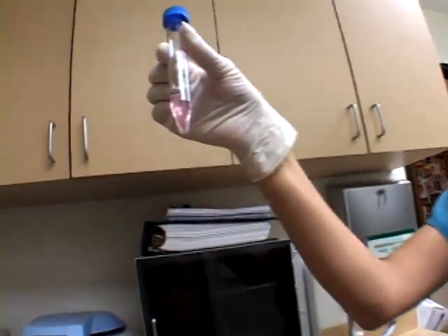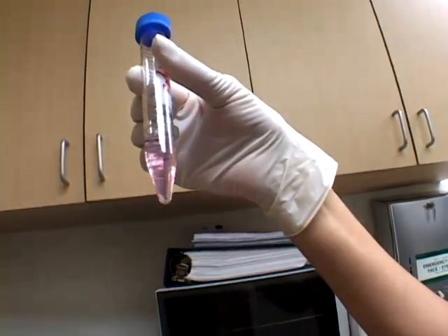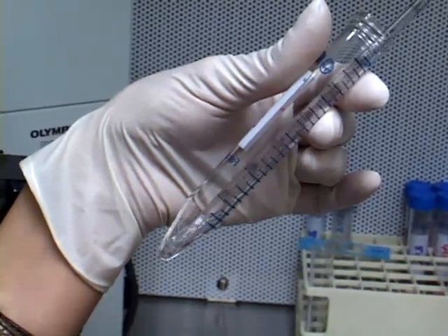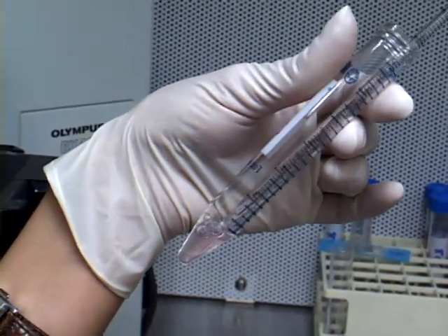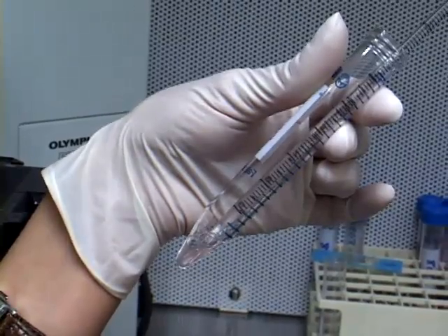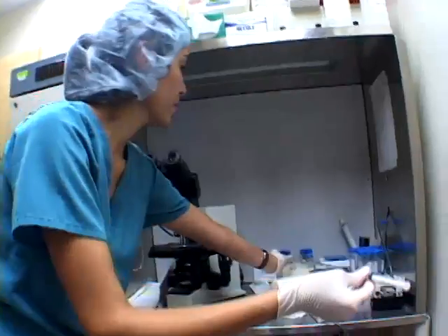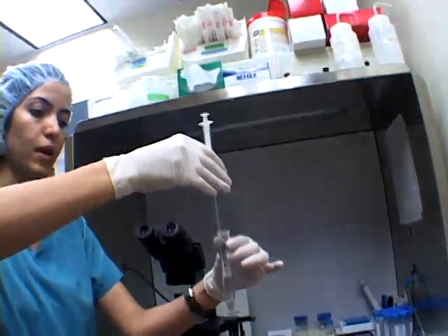You can see the pellet after washing is much better, even better than the first time when you wash it. I try to mix it — most of the time it dissolves quickly and I can get the whole sample here.